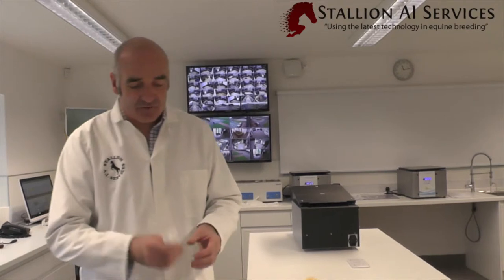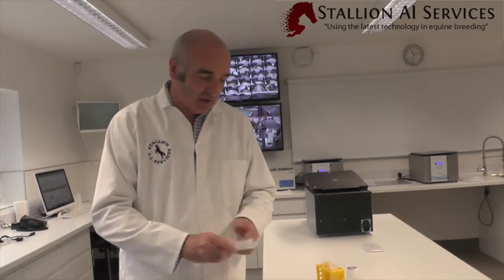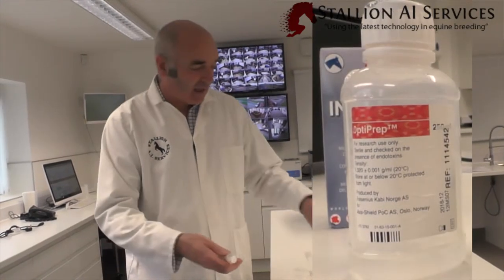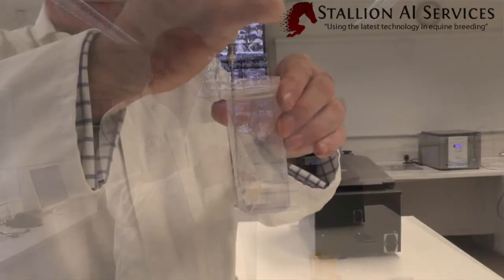The way we do this is quite straightforward. We get a two-part syringe — we don't want to use three parts with the rubber because that can be toxic to the semen. We use one of these needles and a substance called OptiPrep, which is our cushion. We usually use about one to two mils of OptiPrep when we're doing this.